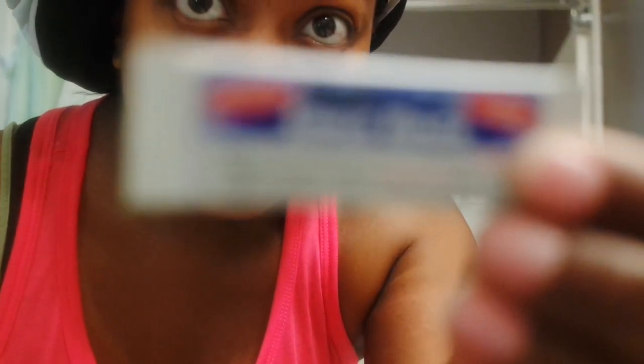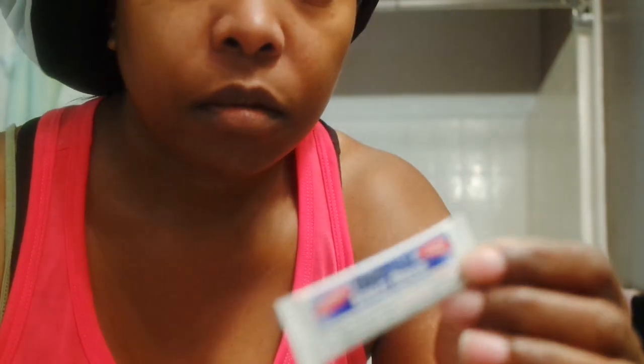Next, what we're going to do here after getting my sinuses all cleared up is I want to show you guys the little box. With the box information, I'm just going to clearly show you guys this is the neti pot. And besides that being the box — I almost forgot, I had to get it out — I hope you guys can see it. I forgot to bring it up in camera view, but it was a neti pot booklet that came with it. It's a whole kit. You can buy this from Walmart, CVS, Walgreens. That's the solution that comes with it to clear out your sinuses naturally.